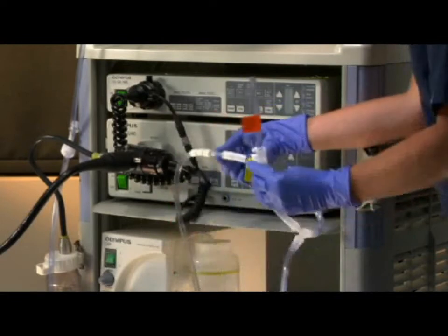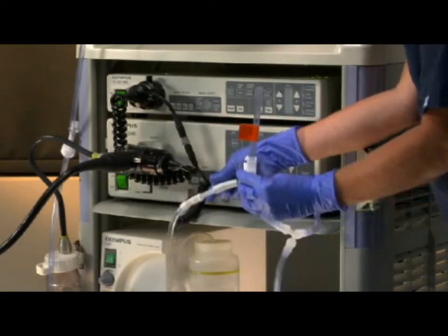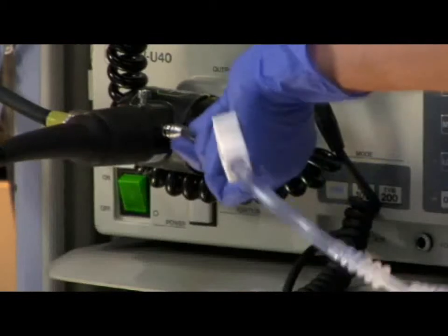Find the orange tag on the Y-Port. Attach this tubing to the endoscope suction barb.